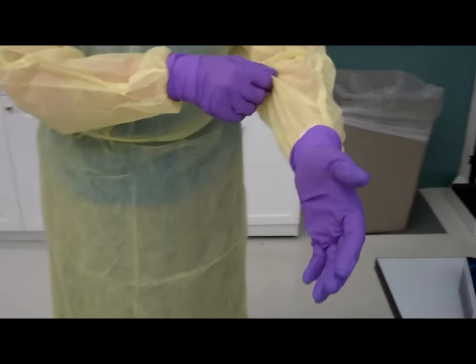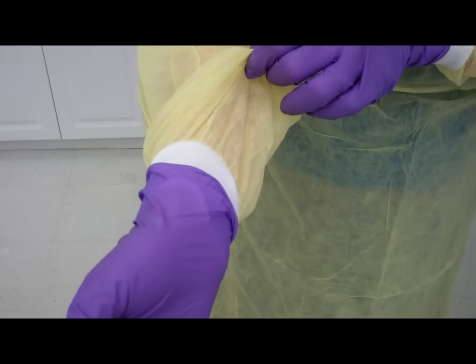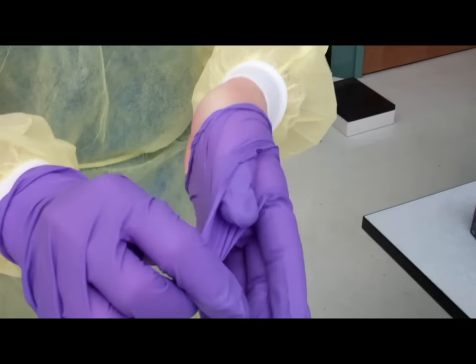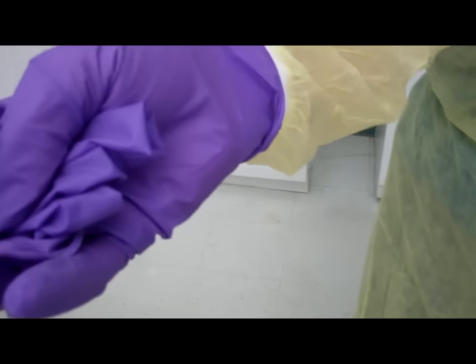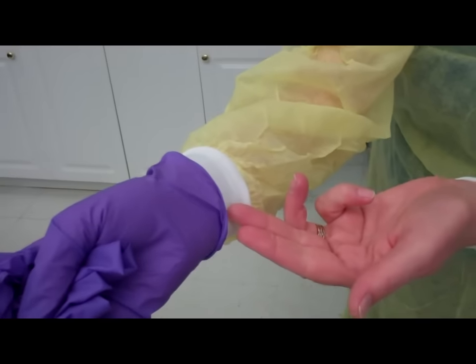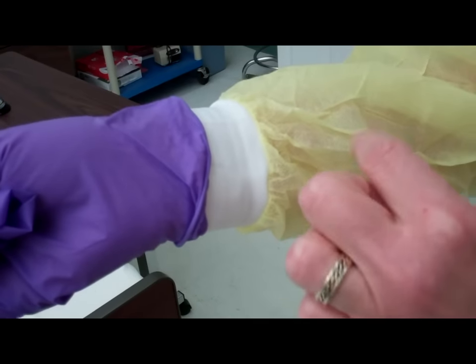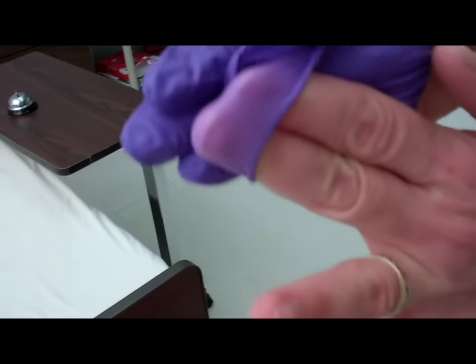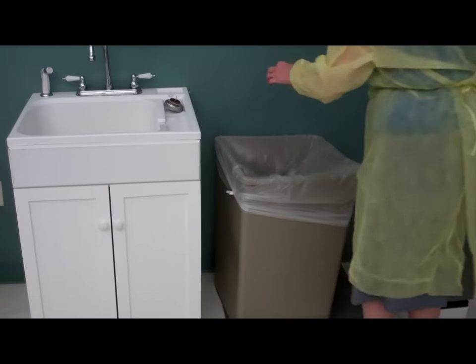Next, I'm going to remove the PPE. Expose the cuff slightly on both of your hands. Taking one gloved hand, I'm pinching the palm of the other and pulling that glove off, holding it in the original hand. I am able to touch the cuff with my bare hand, but do not touch the yellow area as that is contaminated. Sliding my fingers underneath, I now turn the gloves completely inside out and they will be disposed of in the trash container.